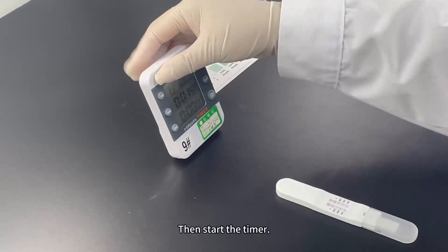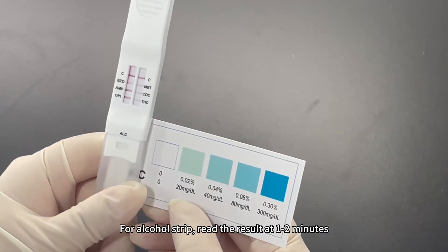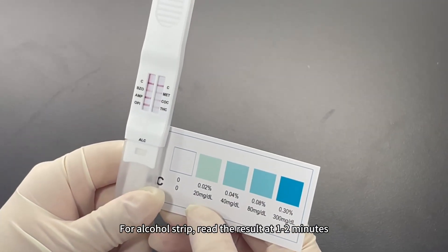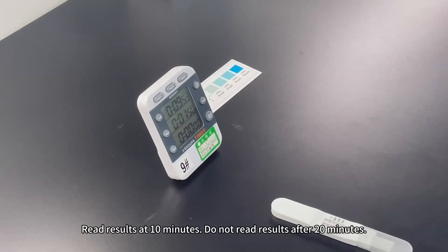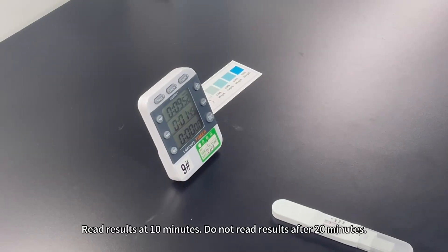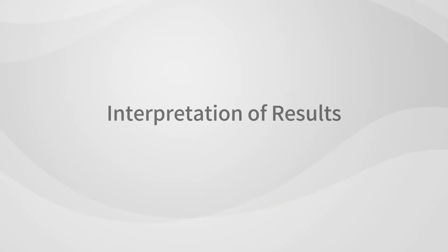Then start the timer. For the alcohol strip, read the result at 1 to 2 minutes. Read results at 10 minutes for other strips. Do not read results after 20 minutes.